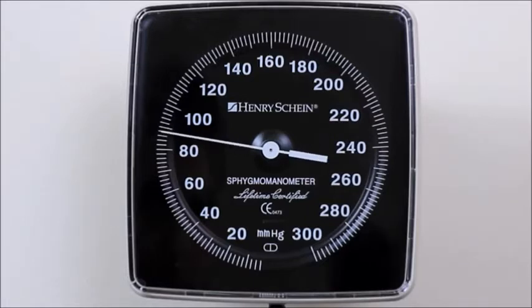Phase IV sounds become muffled and softer as the pressure measurement approaches the diastolic pressure, usually within 10 millimeters of mercury of true diastolic pressure.